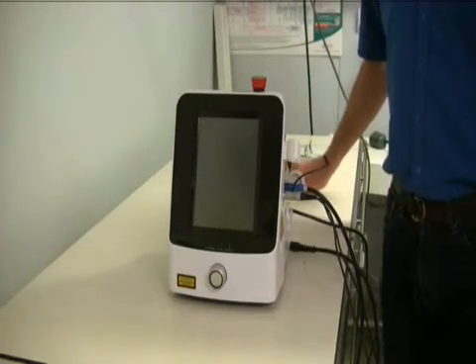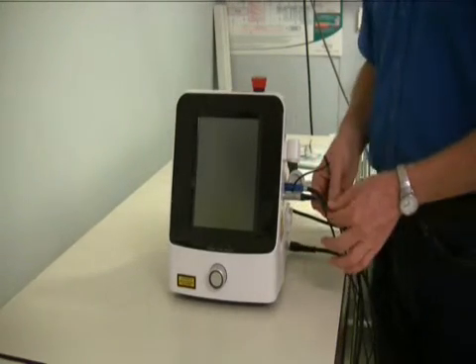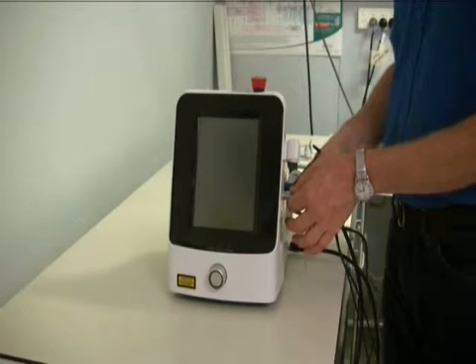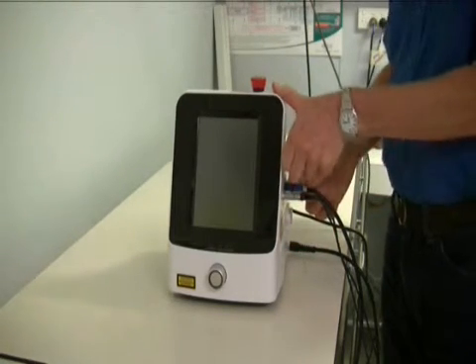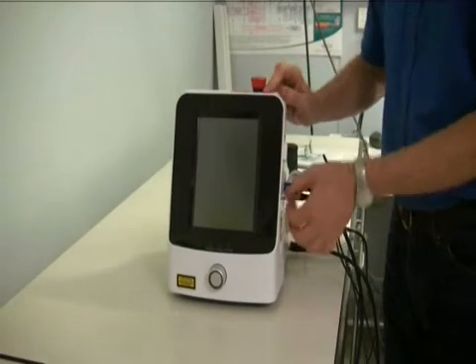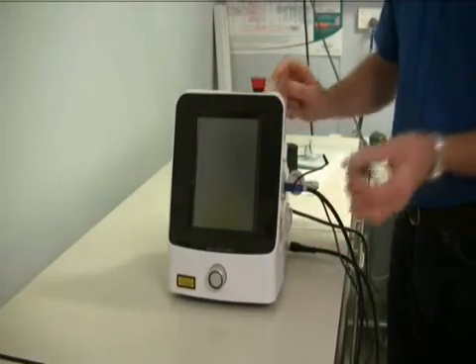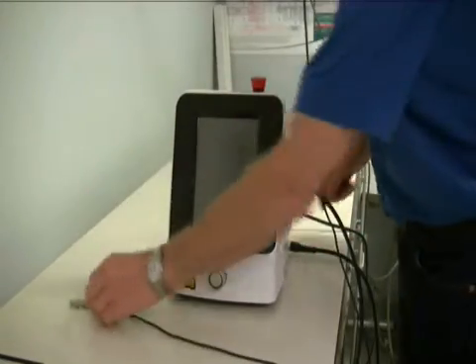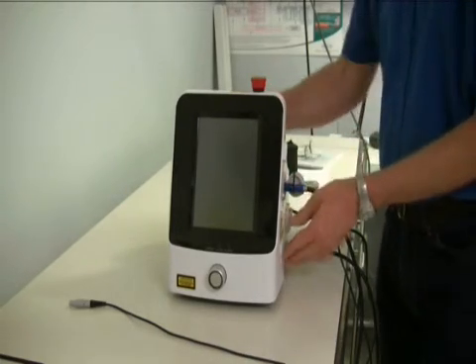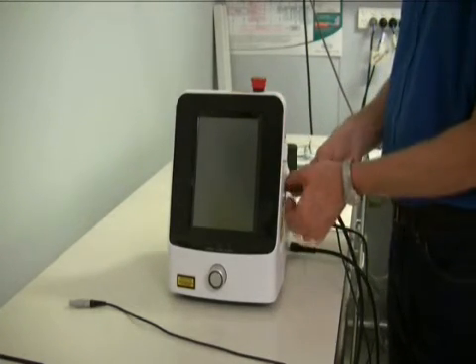If you're going to transport it somewhere, you need to disconnect all the cables. If you try and transport with things connected, you'll run into trouble. Pull all the bits and pieces off and put them in the carriers. With this one, remember to pull back on the grip to disconnect — that's the hand switch for the handpiece. This one here has to be unscrewed.